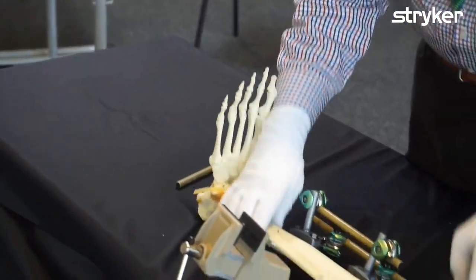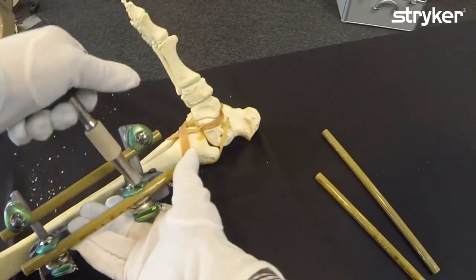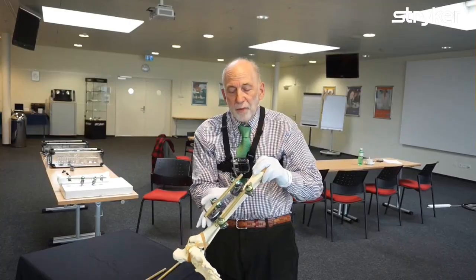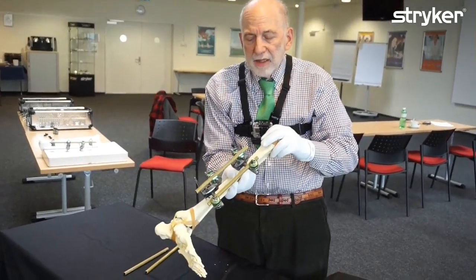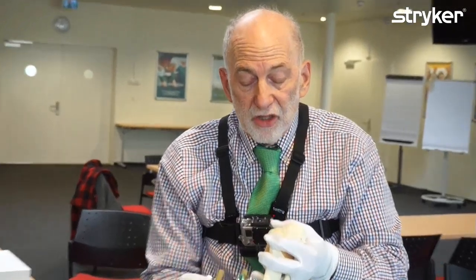So now I take these, click them off, and tighten them down. I have what we call a Geneva frame — a four-pin external fixator with two bars in different planes. It's a four-pin frame with two bars and four connectors. It's a friendly frame because it will fit inside a pair of blue jeans — it's not too wide. The patient can walk around, and it's also a very stable frame. The patient can be full weight-bearing in such a frame.